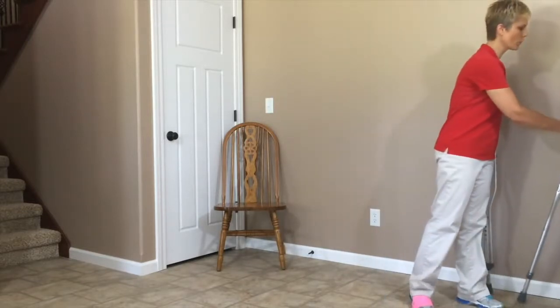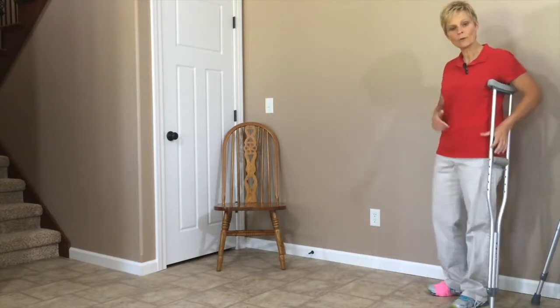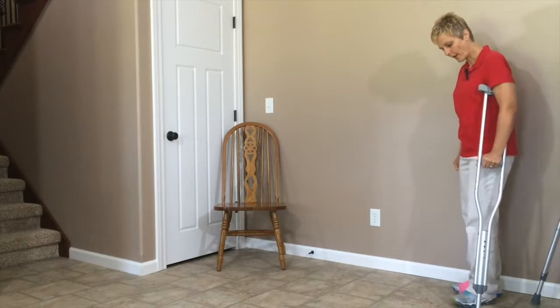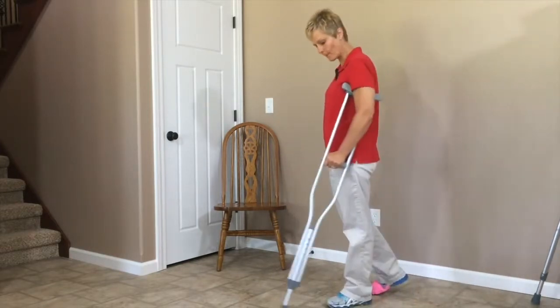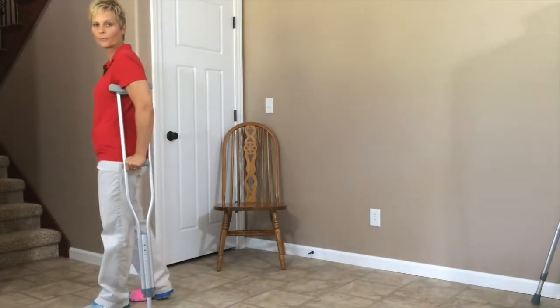Some people will choose to use one crutch if they need a little more stability than a cane. That's fine — no problem with that — but make sure the crutch goes on the opposite side of the injured leg. When walking with that, you're going to put the crutch forward, then your injured leg, then step through with your good one. Crutch, injured leg, step through — crutch, injured leg, step through.